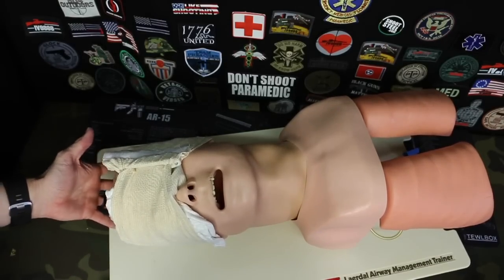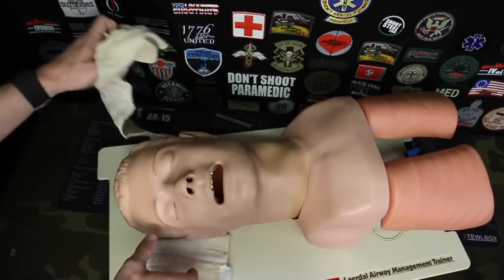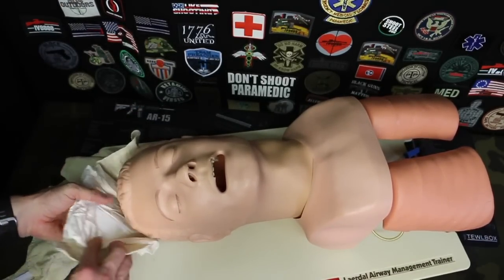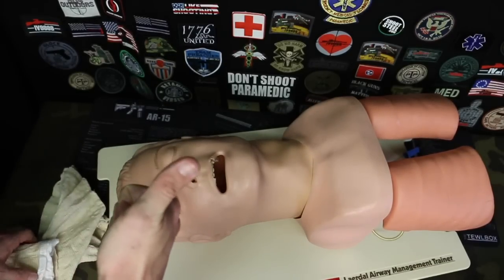In the same concept, if someone has a scalp injury, you can use this bandage for that too. These pressure bandages have tons of uses. If someone has a scalp injury, you can use the bandage on top of the head, side of the head, forehead - wherever you need - to get it wrapped. Works fantastic for that.